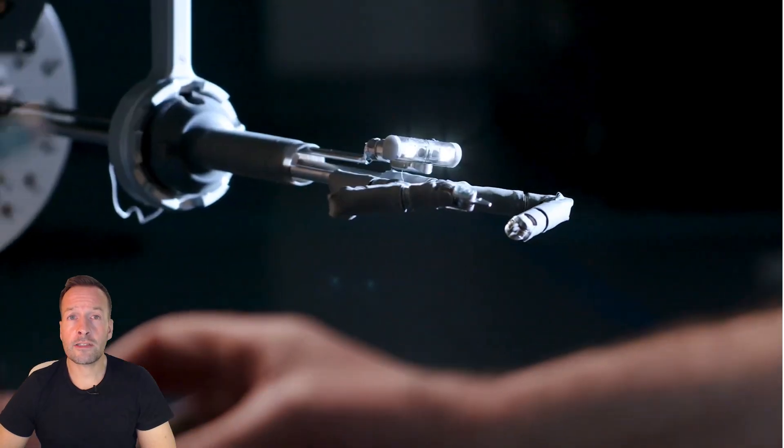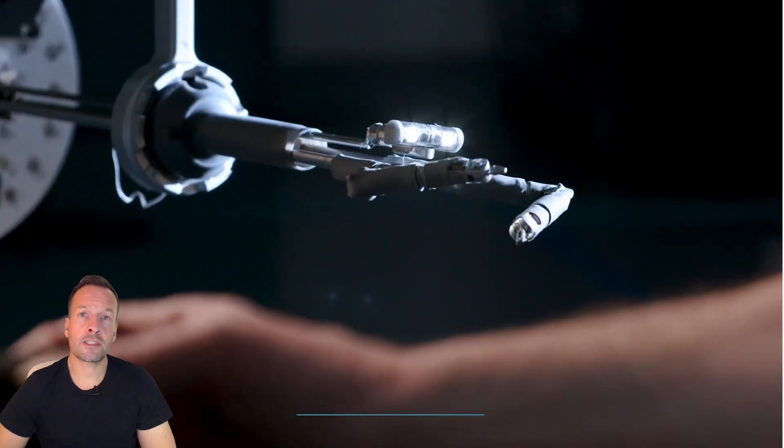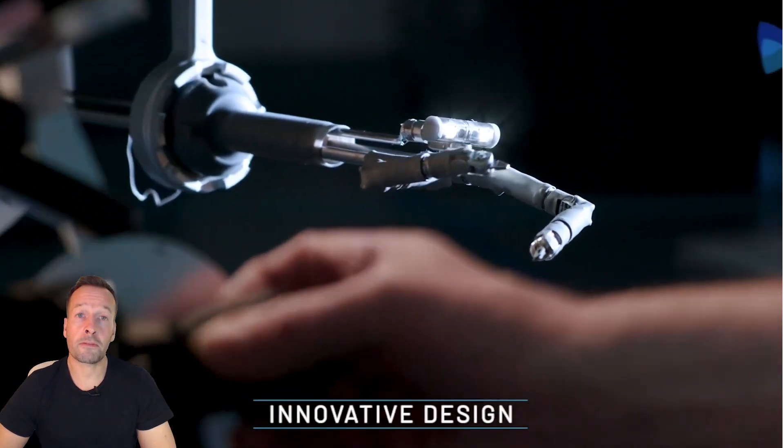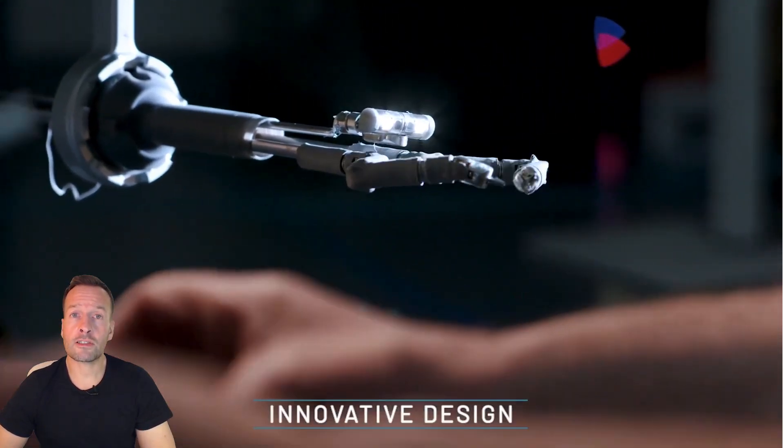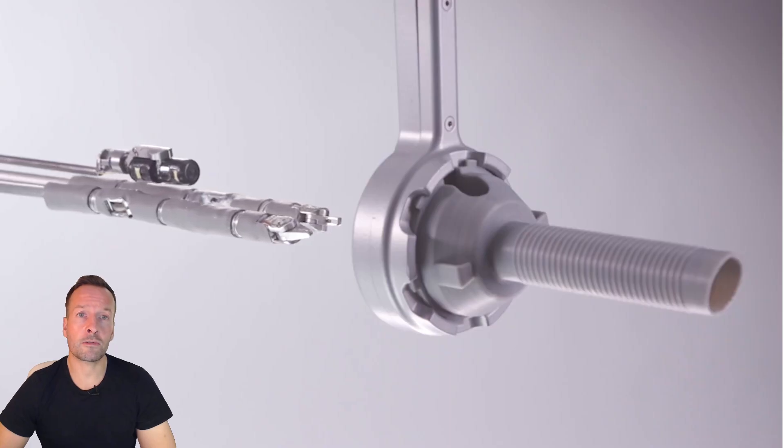One of the major benefits of this technology is the potential to significantly reduce recovery times and minimize complications. Traditional surgeries often involve large incisions and lengthy hospital stays.